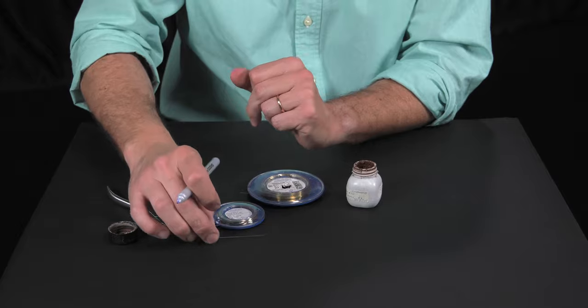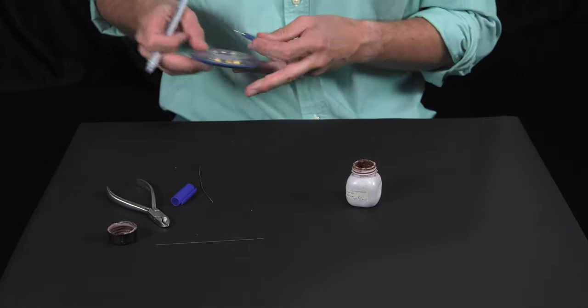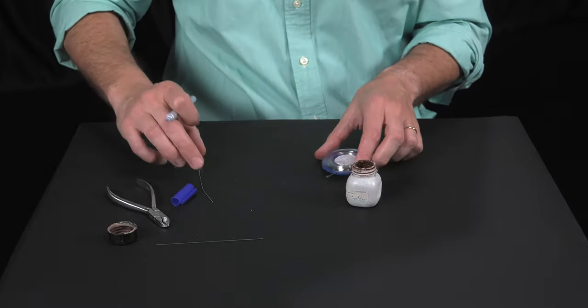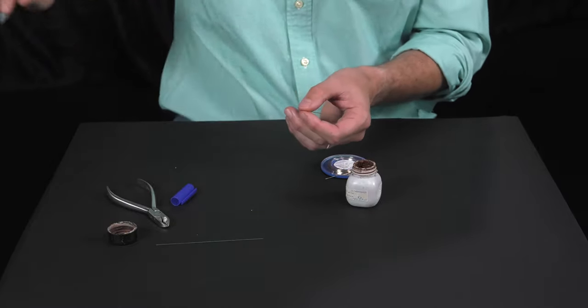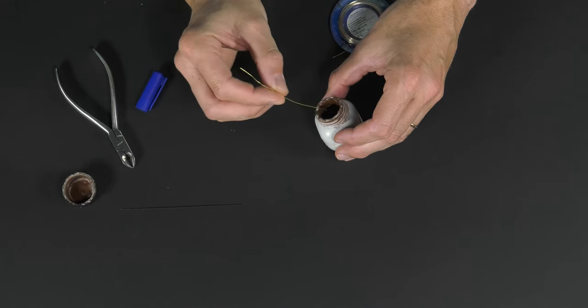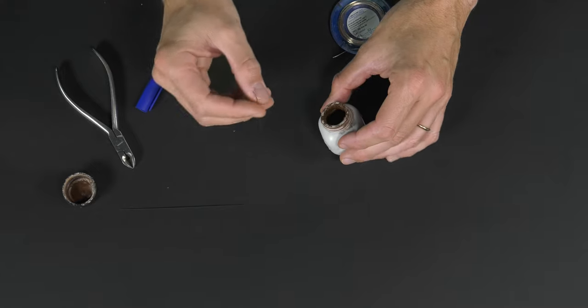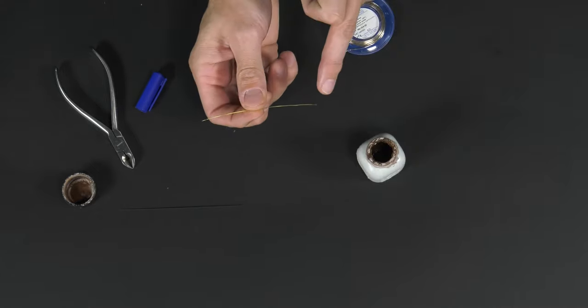We must now fabricate a segment of brass wire that carries silver solder on both ends. To do this, we dip the ends of the brass wire in flux, and this will determine where the silver solder will be placed.